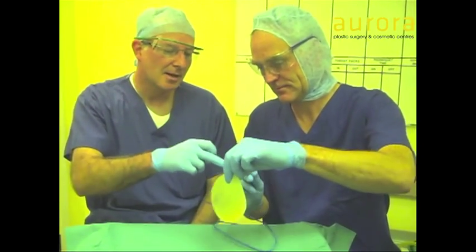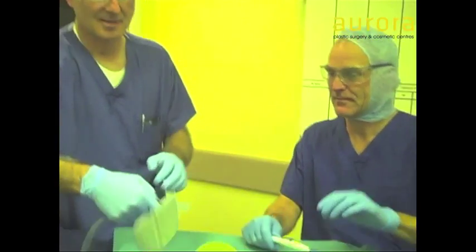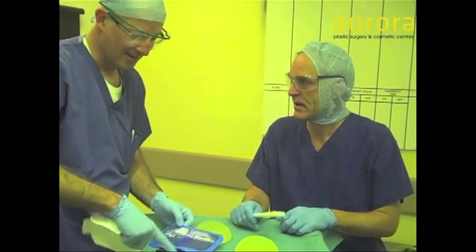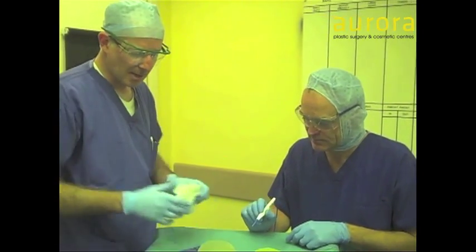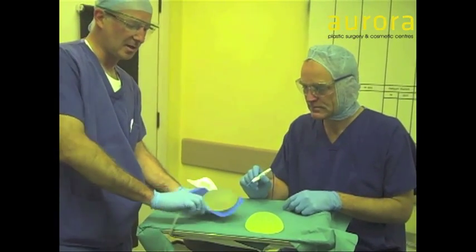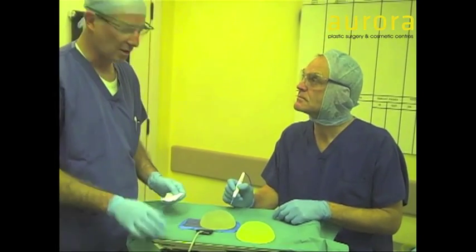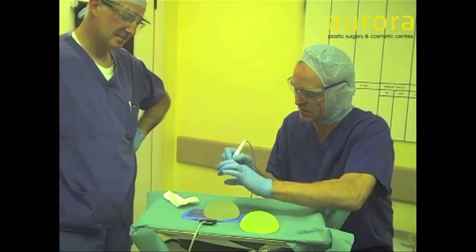There wasn't a circuit between the point of the diathermy tip and the diathermy machine. We have a circuit between the breast implant and the diathermy machine, with a large point of contact on the reverse surface, coming to a small point of contact on the upper surface, which will allow a high current density, which causes a high temperature and a burning effect, which cauterizes blood vessels. So we've got a small point here, electricity goes through — that's used to stop the bleeding blood vessels.